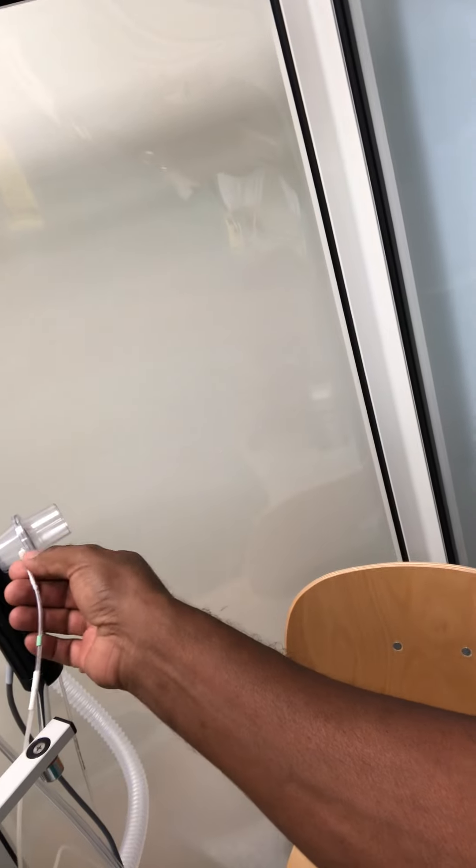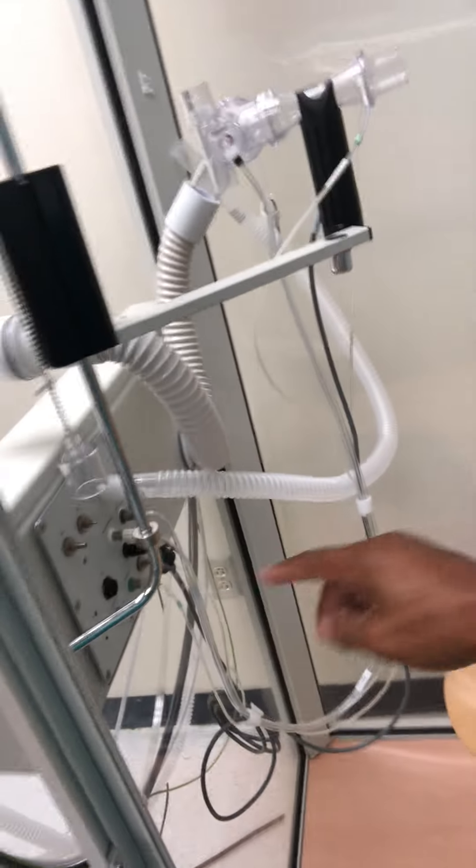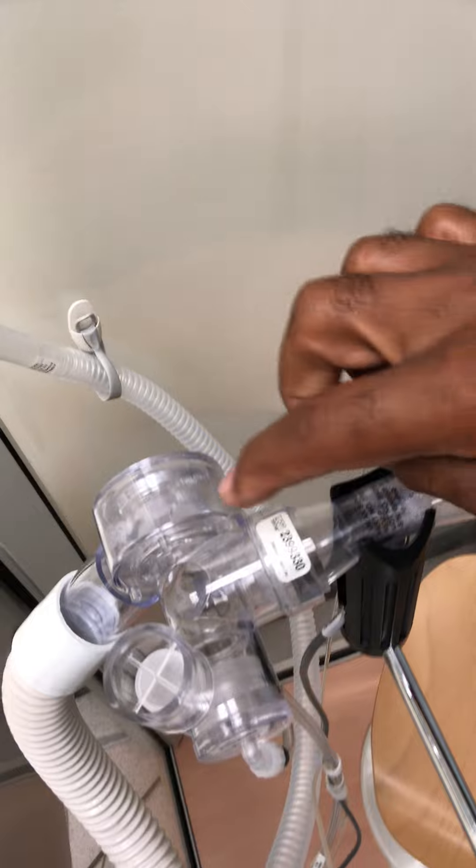When you see here, this is something to take note of — sometimes you'll have little cracks by the lines, and these of course get replaced during maintenance inspection. They have a tendency to get yellow. But as you can see, these small diaphragms in here are also sometimes a cause of problems where they will have little leaks in them.